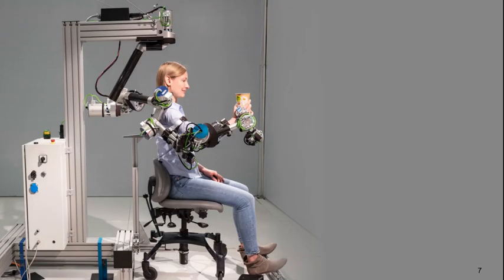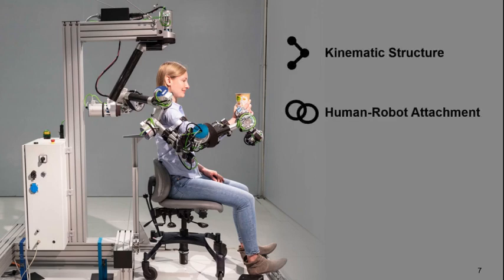Therefore, we looked into developing a new exoskeleton to overcome these challenges by developing a new kinematic structure, defining the human-robot attachment, and novel algorithms to control the interaction between the human and the robot.